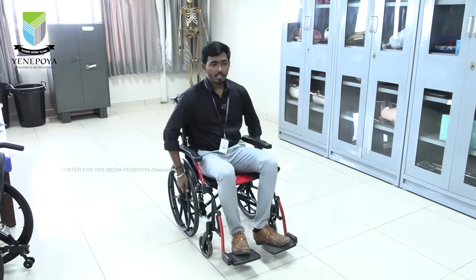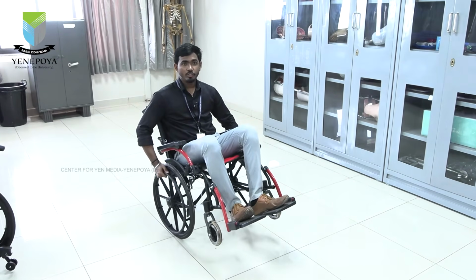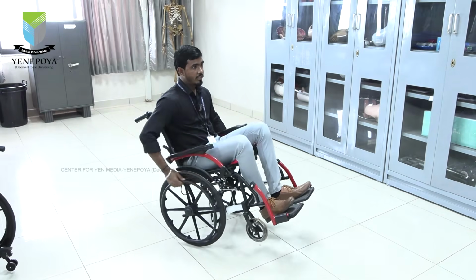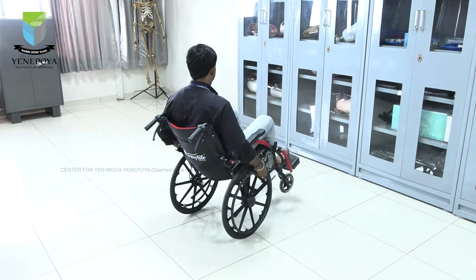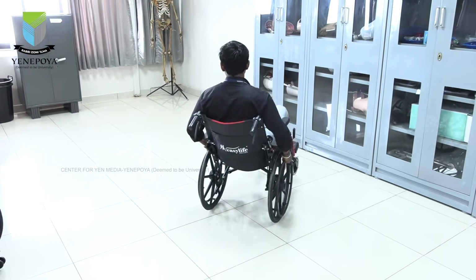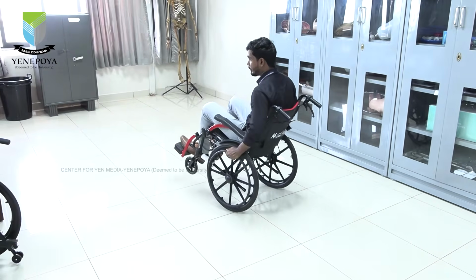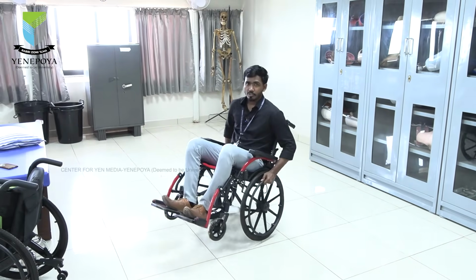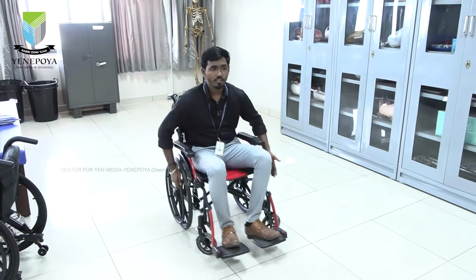Okay. And this is a stationary wheelie we are talking about, and there is another movement also which is somewhat difficult, but you can do it with practice. With the wheelie itself, the person has to turn towards this side fully, but it needs more patience, and the person has to be very cautious about what we are doing, and turning towards this side the person has to perform a full rotation.